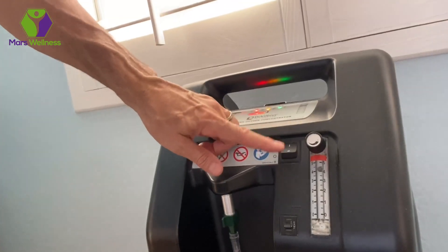I'm going to turn my machine on. Right away it starts the flow of oxygen — I can feel it coming in now. It's actually going to take about a minute to warm up before it gets the full oxygen flow, but it comes in nicely. Now I can come up here on my bed, sit back, do some reading, relax, or just go to sleep if I use this at night. This is nice, it has a nice fit to it.